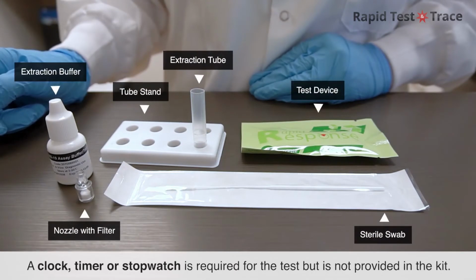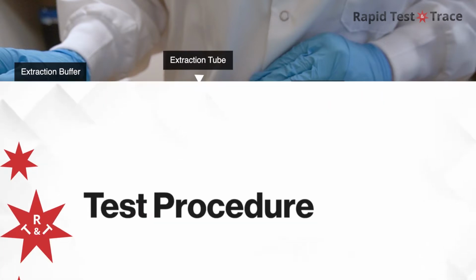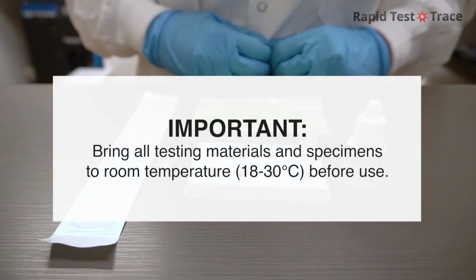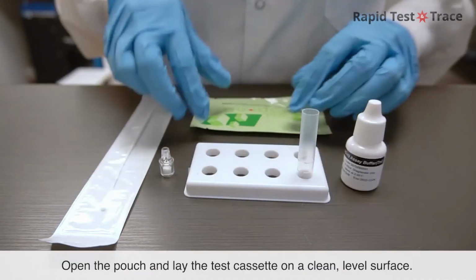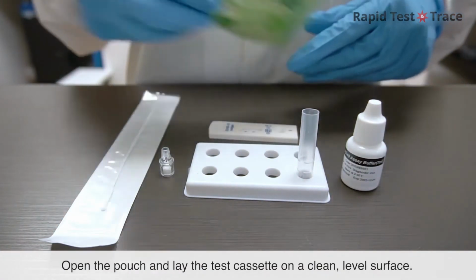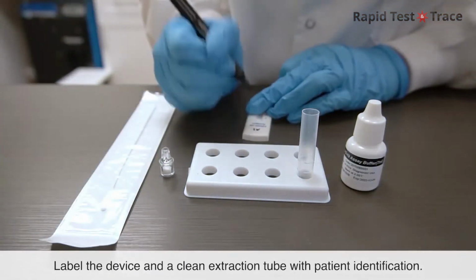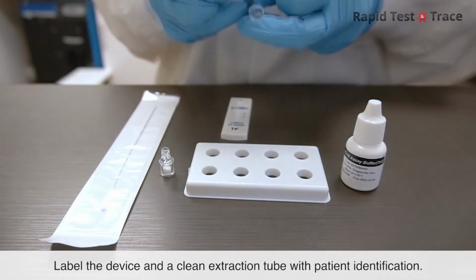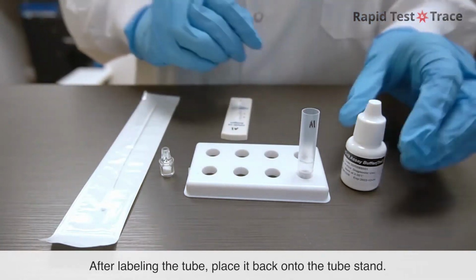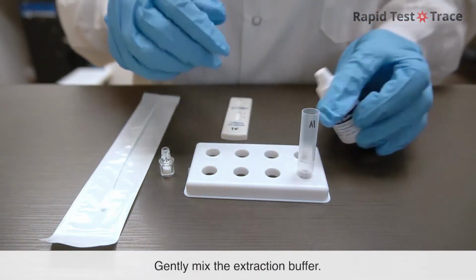A clock, timer, or stopwatch is required for the test, but is not provided in the kit. Bring all testing materials and specimens to room temperature before use. Open the pouch and lay the test cassette on a clean, level surface. Label the device in a clean extraction tube with patient identification. After labeling the tube, place it back onto the tube stand.